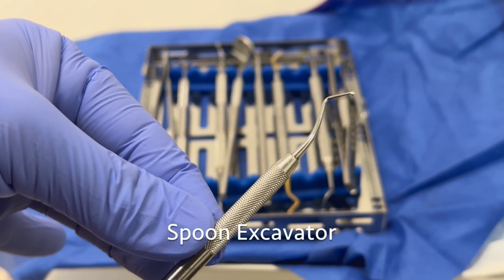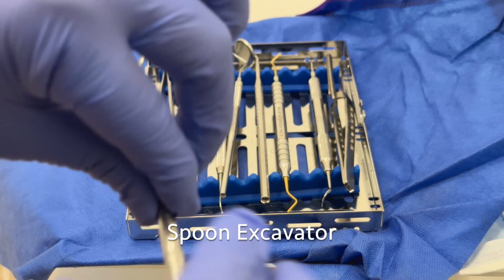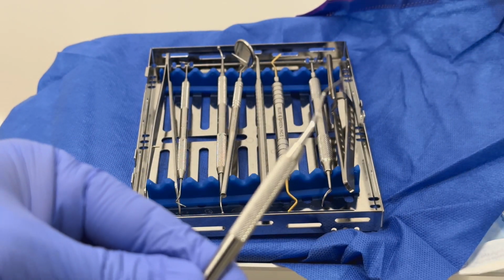We have our spoon excavator. This is used typically after using the high speed and slow speed to remove dentin as we get closer to the pulp.